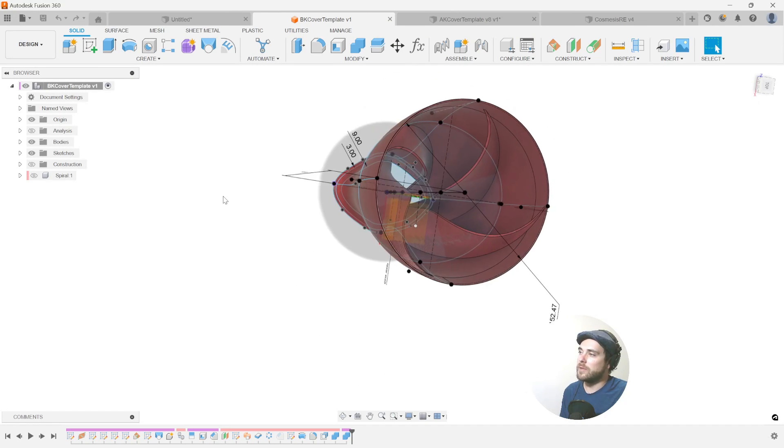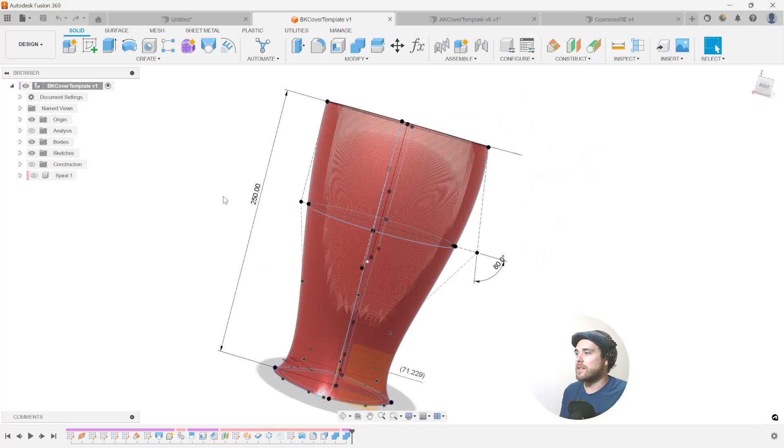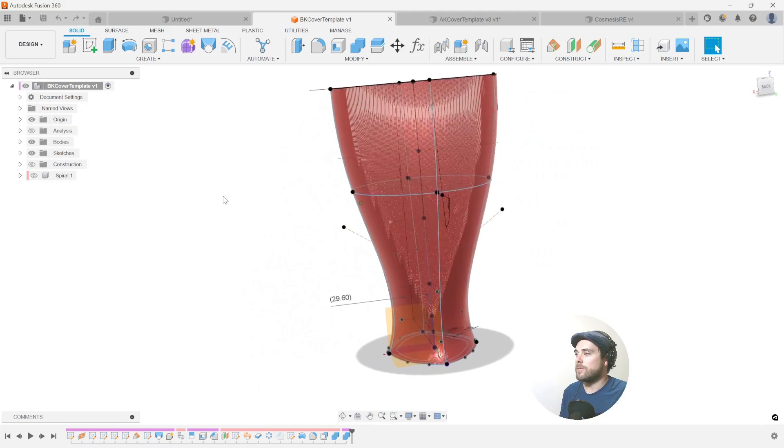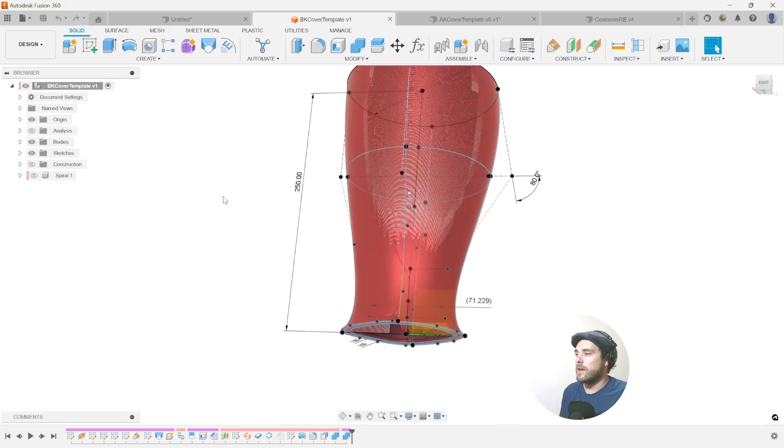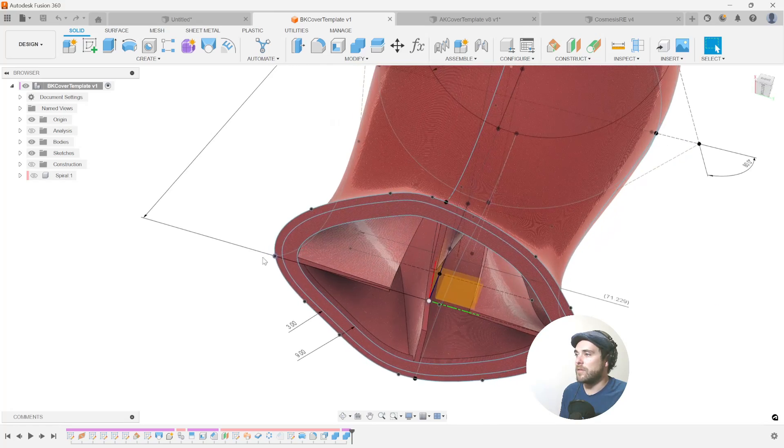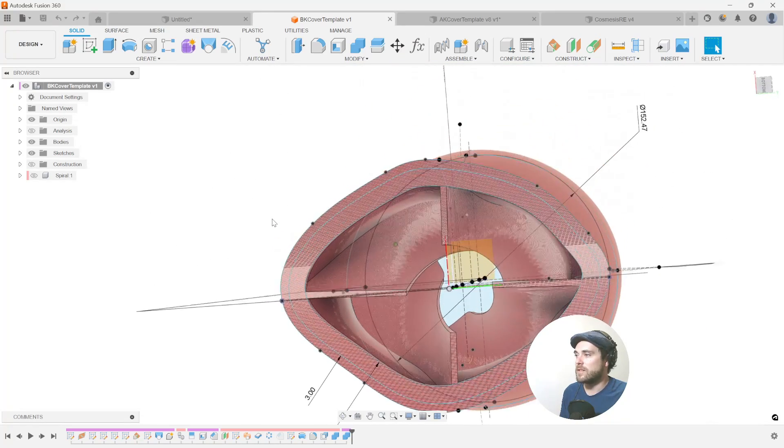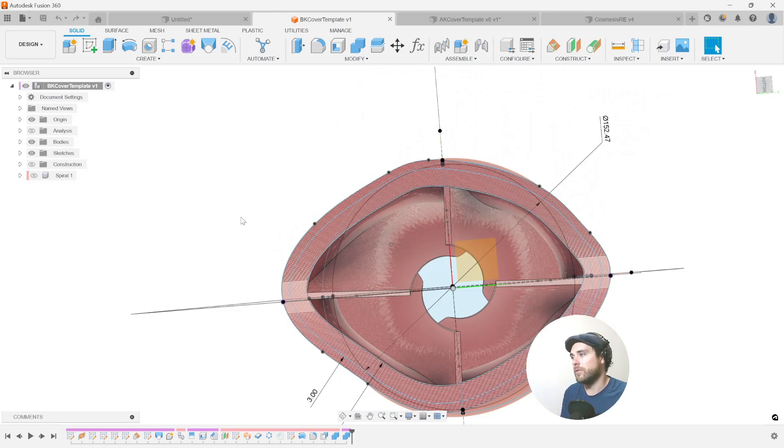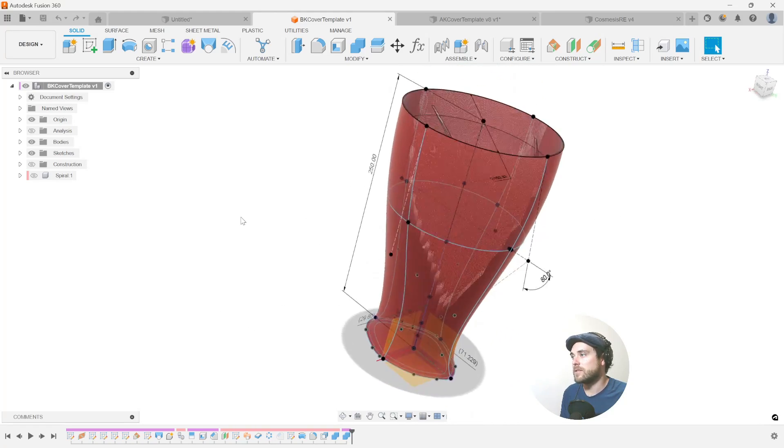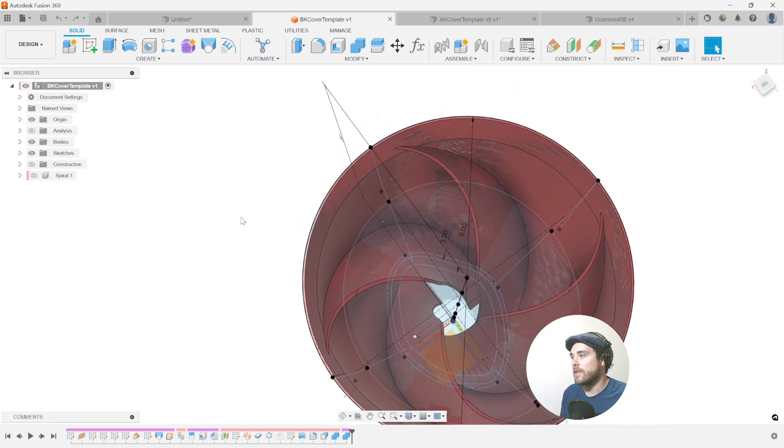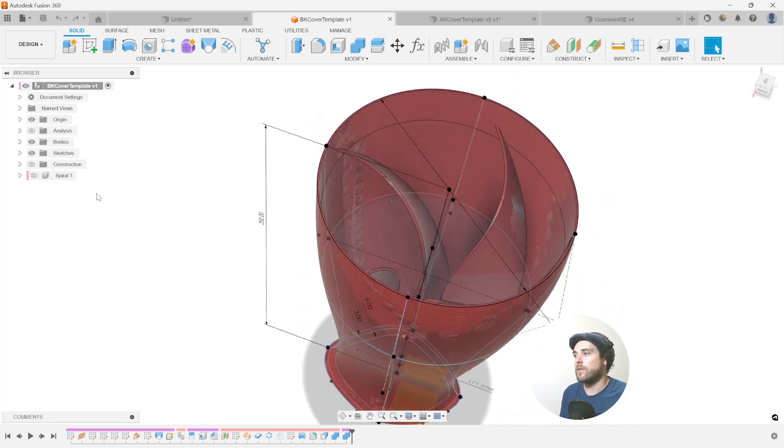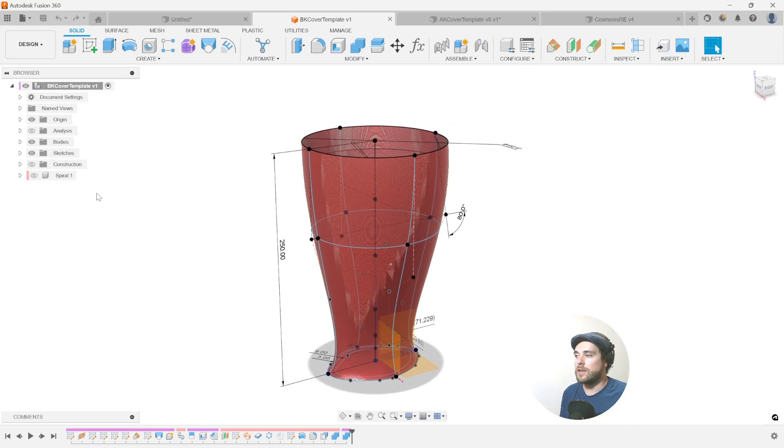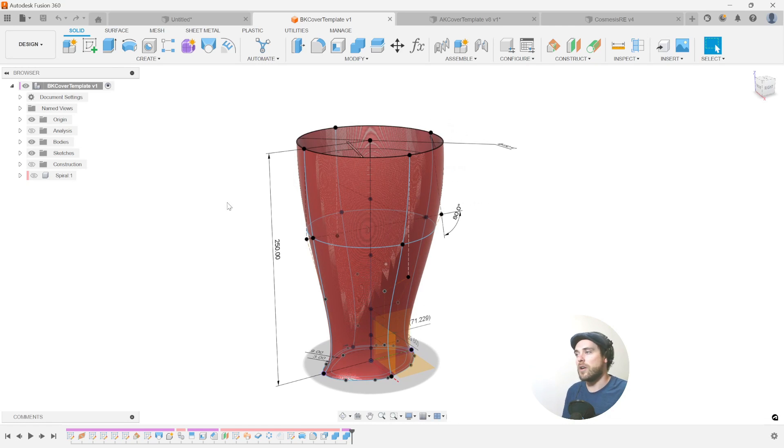we're going to hop into Fusion 360, a cosmetic cover template, one of the templates we make in our course. This is a BK design with flowing lines, medial lateral posterior anterior trim lines. We've got a machinable bottom with the flange for printing and we have spiralized ribs on the inside to grip the pylon while also providing a very forgiving interior space so they will bend out of the way or curl out of the way in the event of any weird clipping. So a nice design, good template.